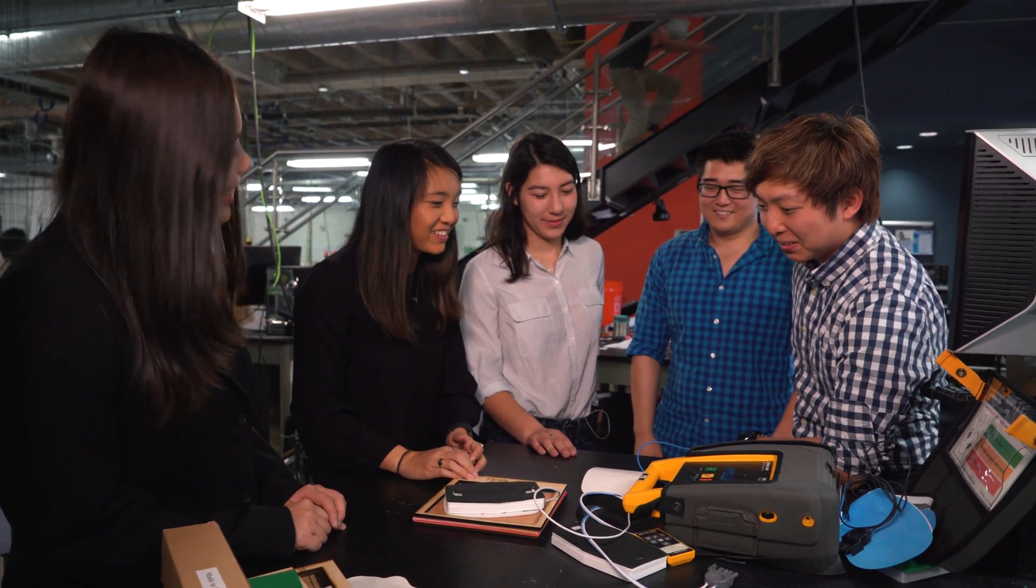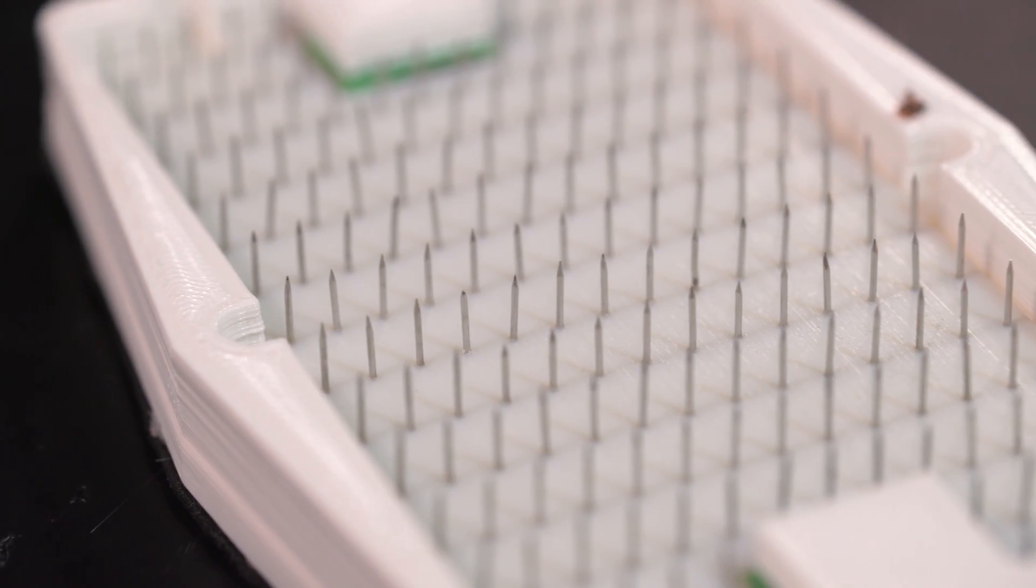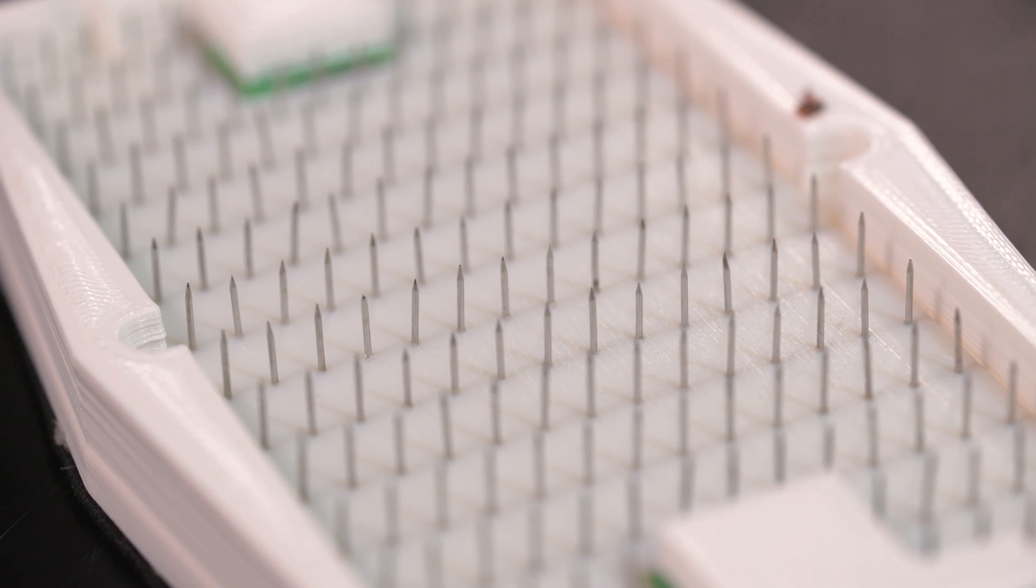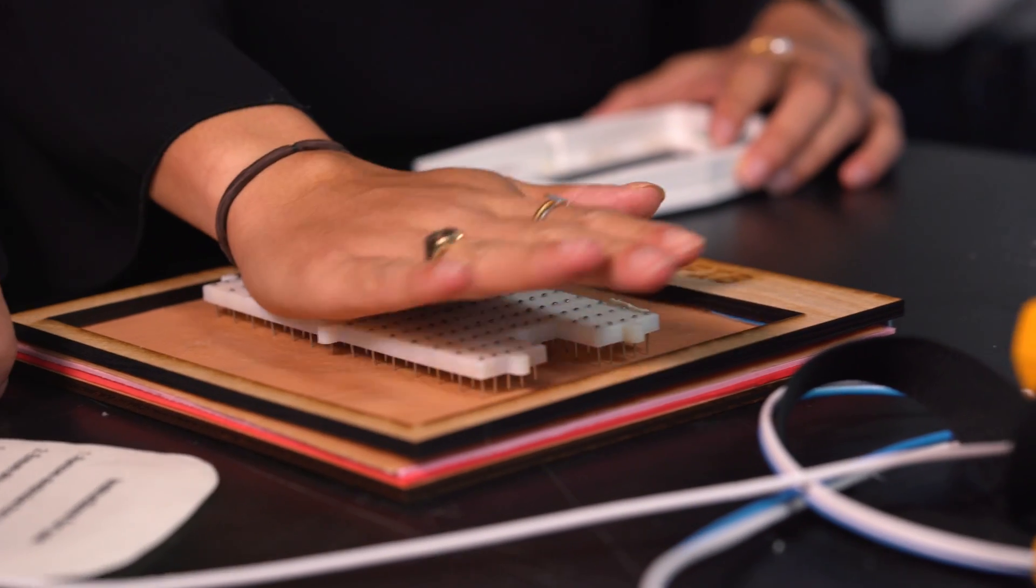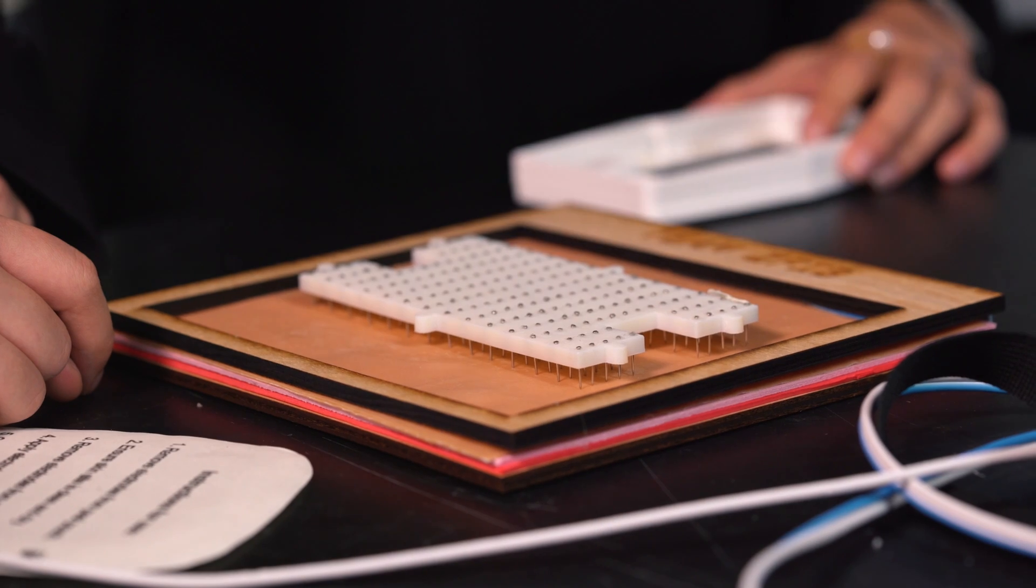Our goal is to create a device that can help improve the survival rate by bypassing the skin, so we can more effectively deliver current to the heart.